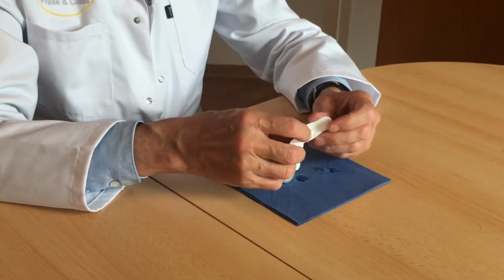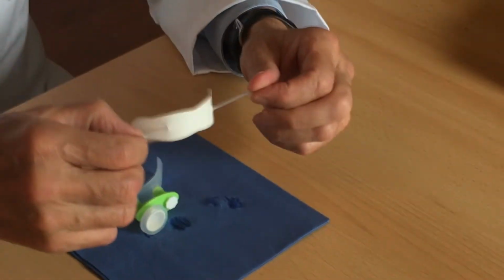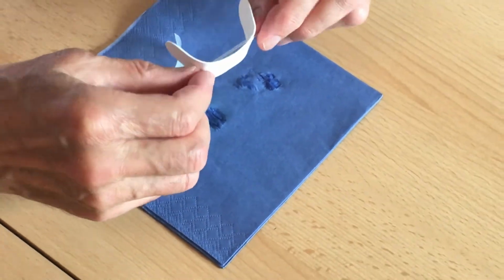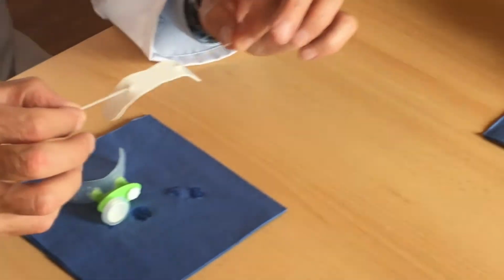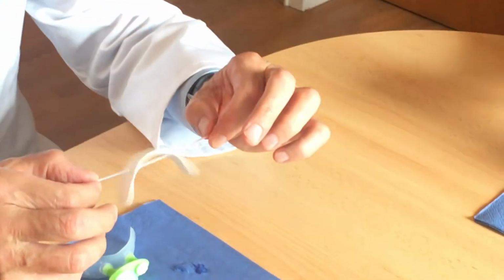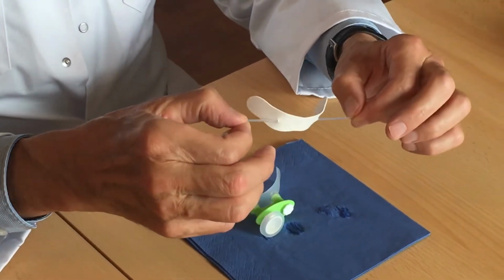And now I would like to show you the use of the other little instrument, which is called Liplock. The Liplock device has two ends, which allow to keep the Liplock in a horizontal position, and which indicates the direction of the placement of the membrane.